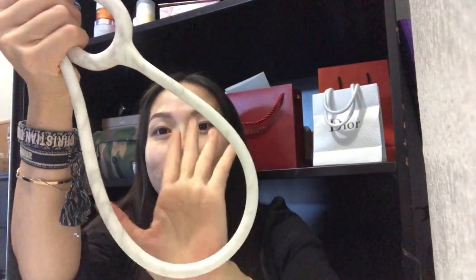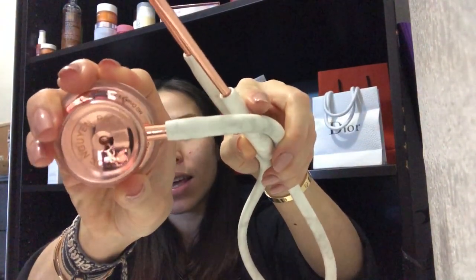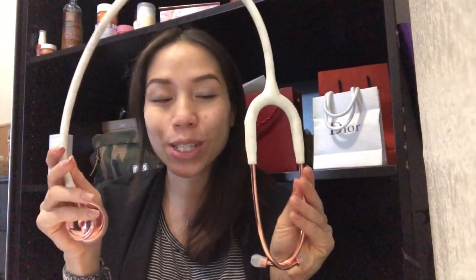I'm super excited. The sound quality is really good. The only thing is the head — the diaphragm and bell — is quite heavy. I can't remember if my Littmann was this heavy, but the sound quality is solid so far. I'll do an updated review once I've used it more. I love marble so I hope the white tubing stays clean and doesn't turn. I also really enjoy having the engraving on there. This is my new stethoscope — I usually wear it at work like this, and when I'm not using it I just place it on my desk.